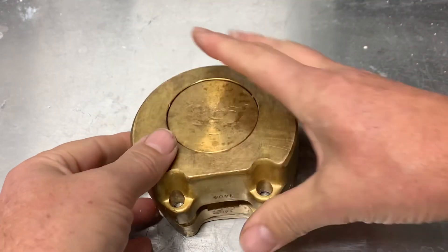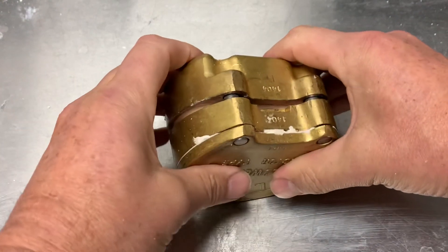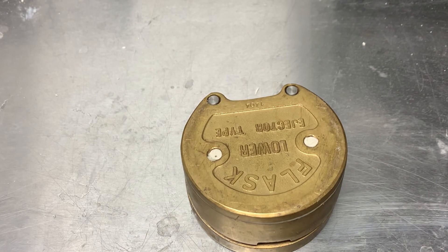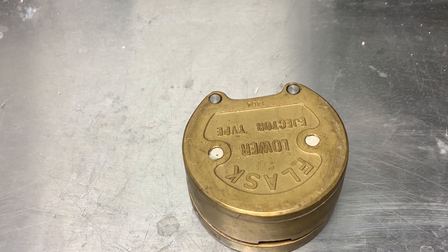Now I just need to put these two halves together and put it under the hydraulic press — under 100 bar, slowly. As you can see, the acrylic when I was working it is very snappy, not that stringy consistency. I'm going to put this in the clamp, put it in the curing unit, and then we'll reconvene for deflasking and trimming.